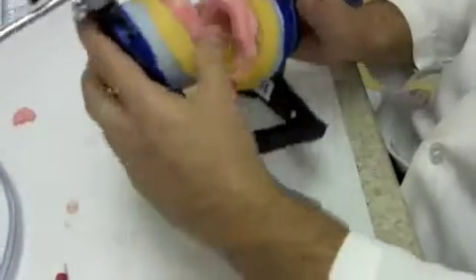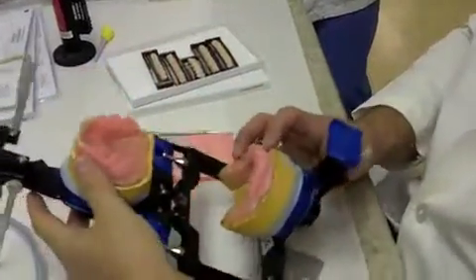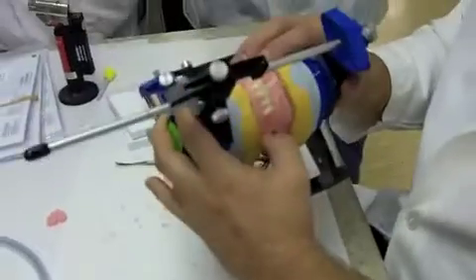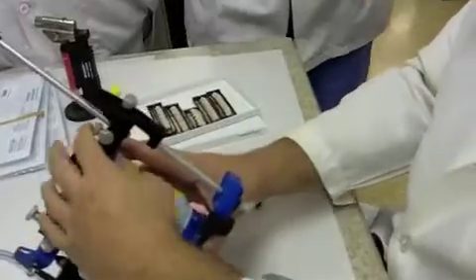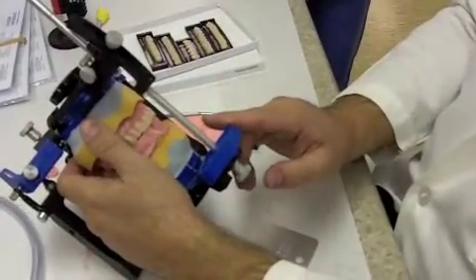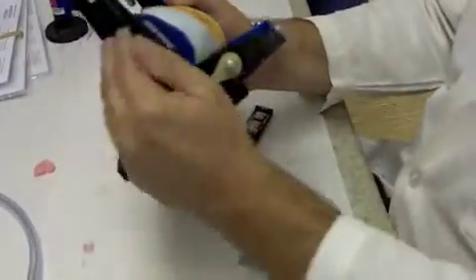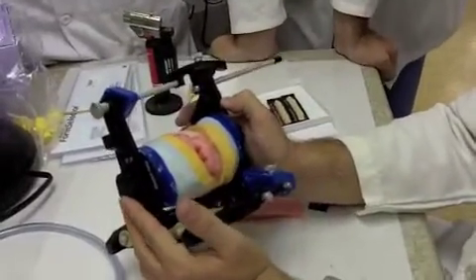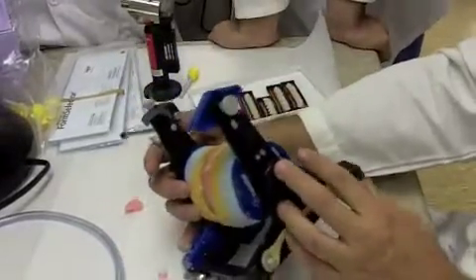We also want to try to keep the midline in line between the maxillary and mandibular anterior teeth. If for some reason we lose that relationship during processing, it's not really a big deal — it just lines up the teeth a little bit better functionally. One very big distinction: the central and lateral incisors, whether maxillary or mandibular, tend to flare out or toe out, meaning the cervicals are usually in more than the incisal edges — the opposite of canines, where the cervicals are out more.